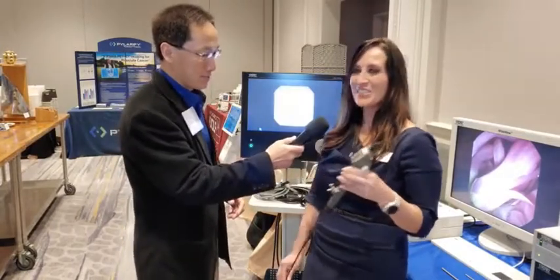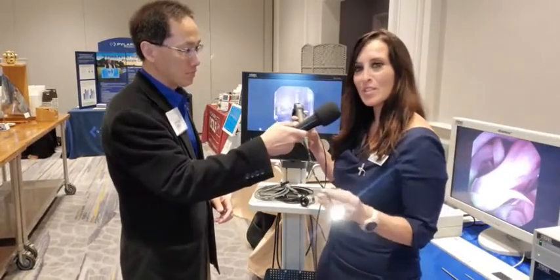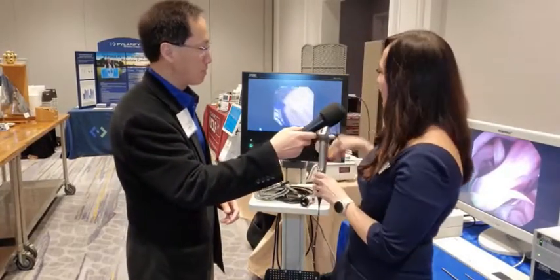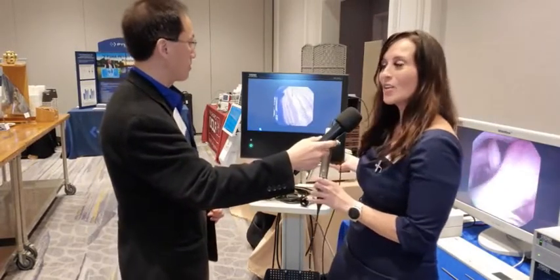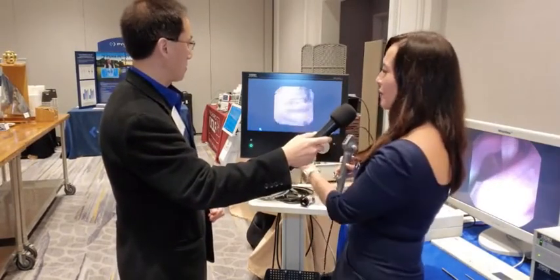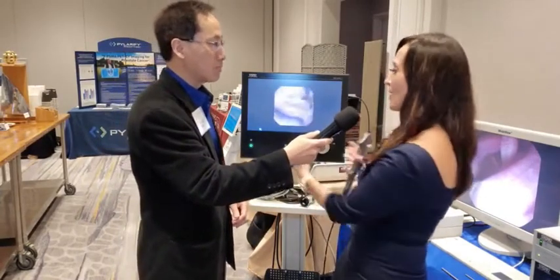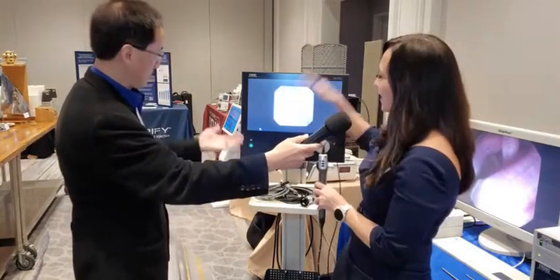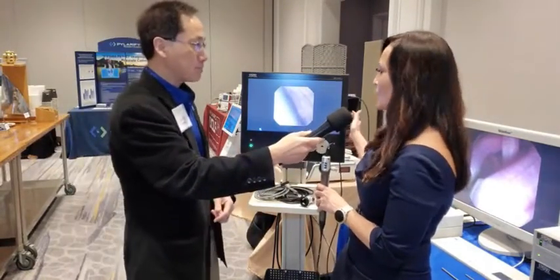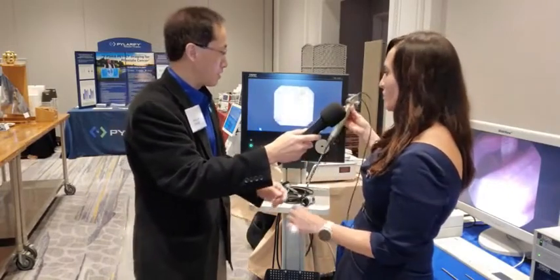Sure, I'd love to. Hi everybody. I'm holding our digital cystoscope here, plugged into our all-in-one compact solution — our Telepack Plus. So instead of having a large video tower for the OR, an office clinic needs something a little smaller, a little more compact. All-in-one meaning the light source and your CCU are integrated, so you don't have multiple pieces.